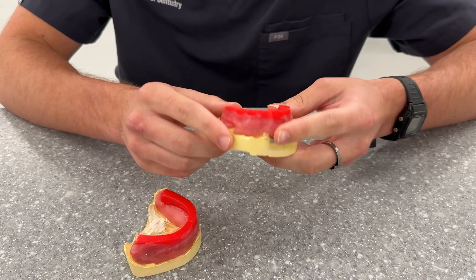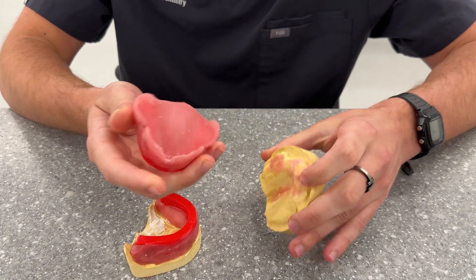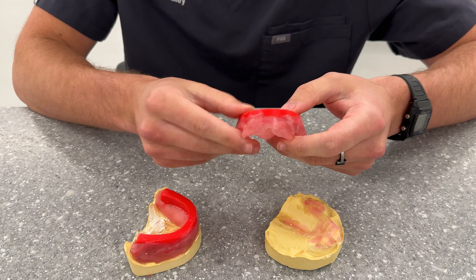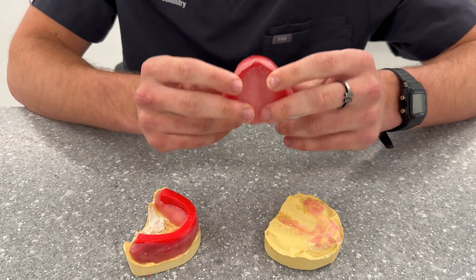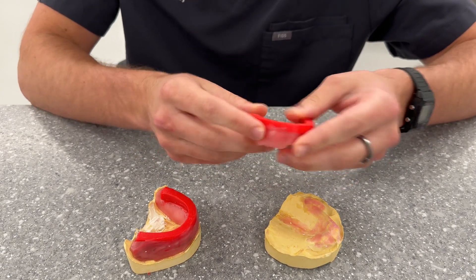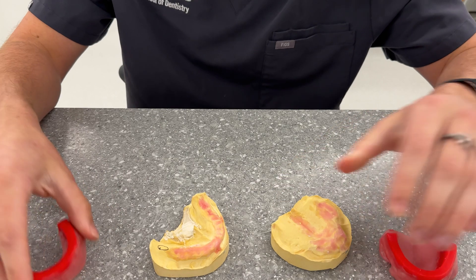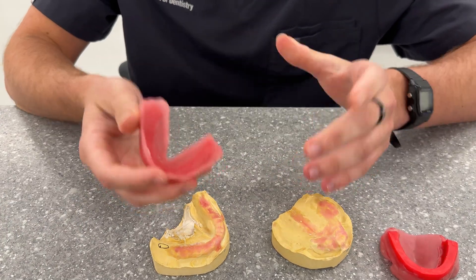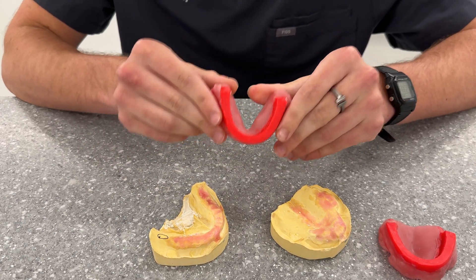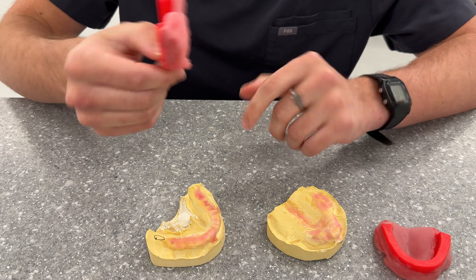When we're fabricating our custom trays for these digital dentures it's going to be a little bit different than we would for a conventional denture. On a conventional denture you would have your triad material and then you would have your little handle right here so you can take it in and out at the appointment. But for this we're going to ideally do our maxillomandibular relations in the same appointment. We're going to fabricate these off of our final impression, so we'll fabricate our custom trays, make sure they're smooth just like a normal conventional workflow, and then put a wax rim directly on it. There will be no handle — the wax rim itself kind of serves as a handle that you're able to grip to take it in and out of the patient's mouth.